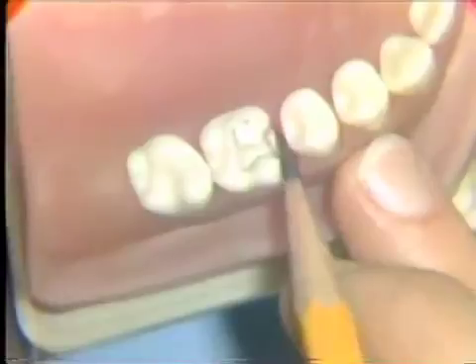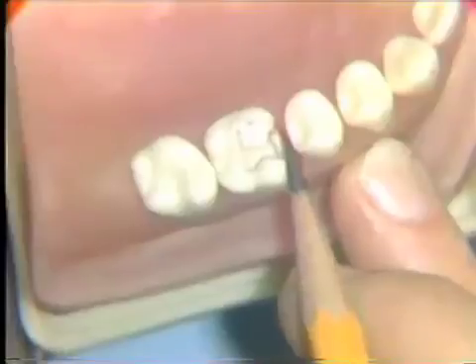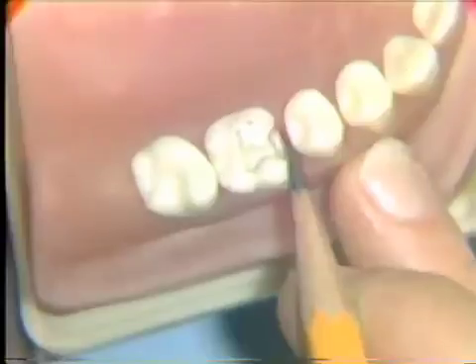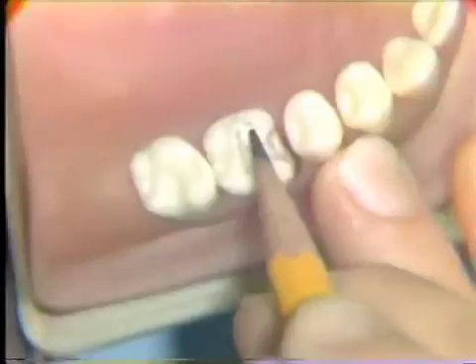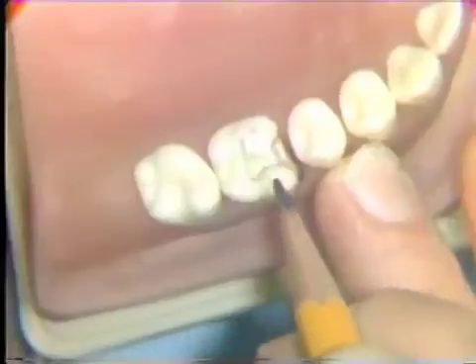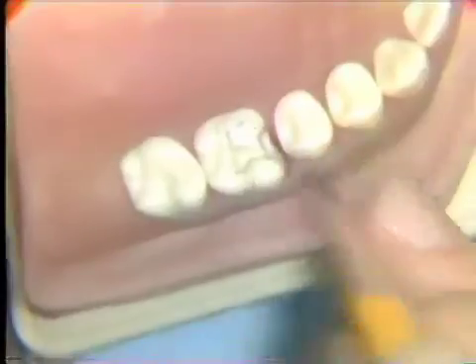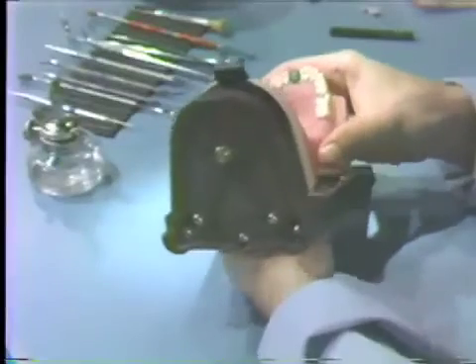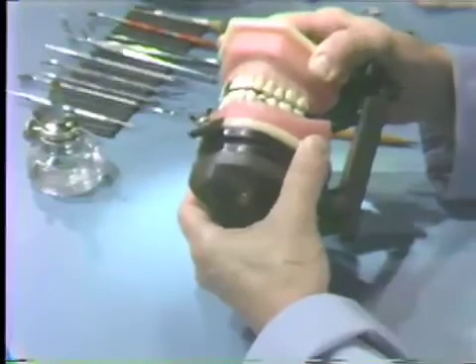The mesial marginal ridge must be of equal height to the distal marginal ridge of number 13, and the contact area must be properly placed. Remember, the mesial lingual cusp apex must be placed toward the buccal surface of this tooth. The mesial lingual cusp is a supporting cusp and therefore has a centric stop in the central fossa of number 19.